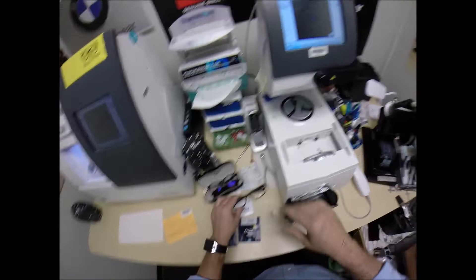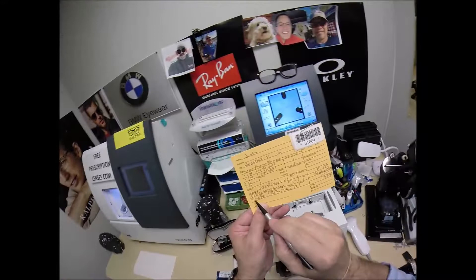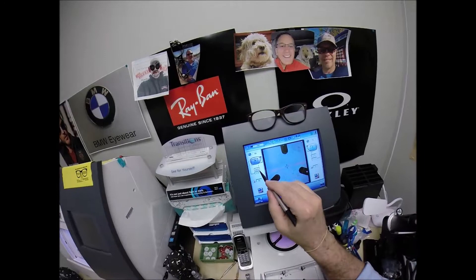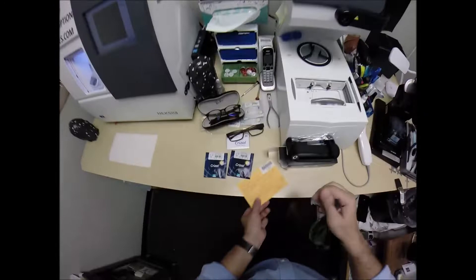That is the shape that I'll be cutting. Your pupillary distance for your right eye and your left happens to be 34 each. The computer starts at 32.5, so I'm going to tap the plus button until we get to 34. I do want to raise the optical center height up two millimeters to 19.